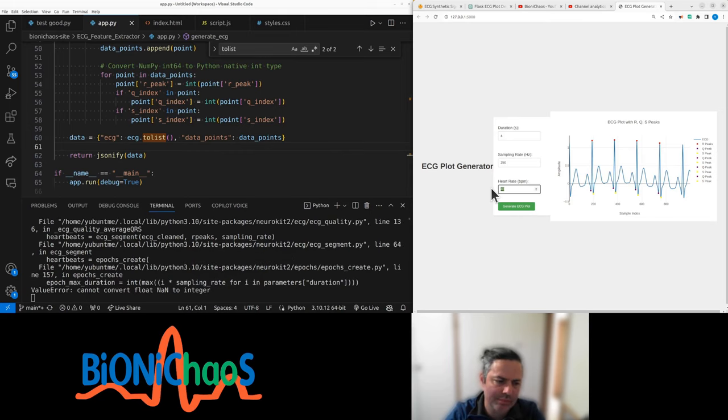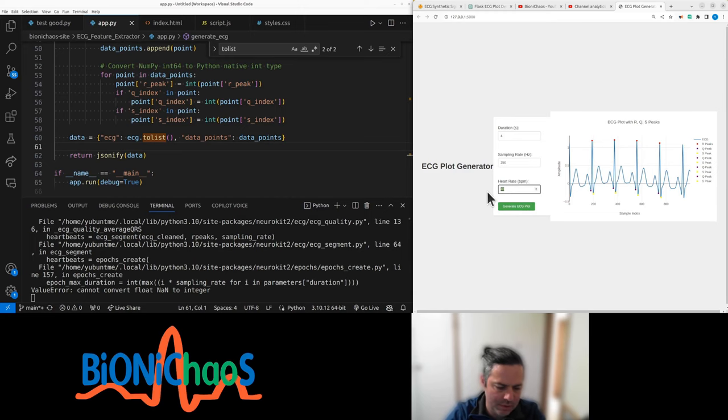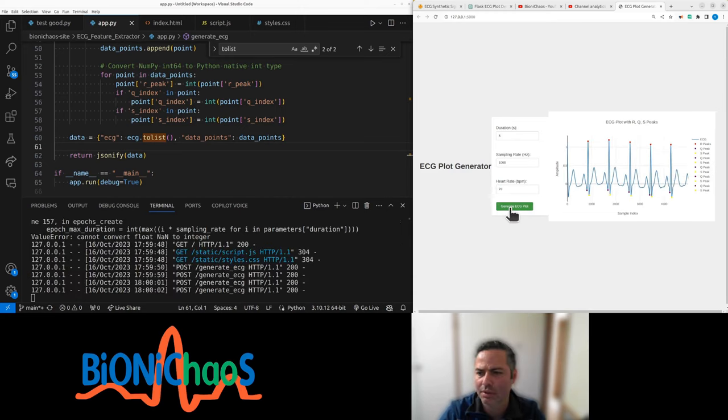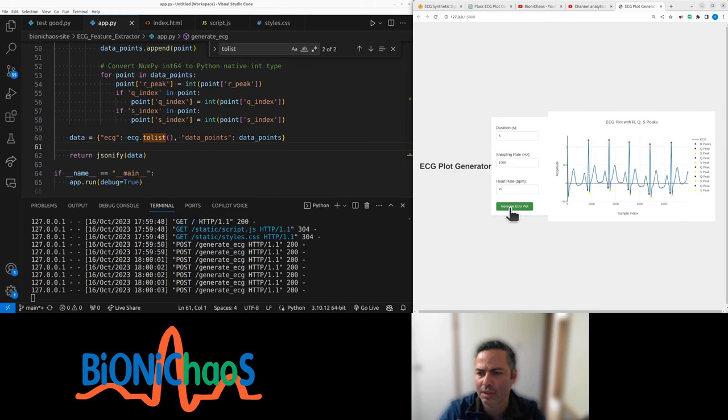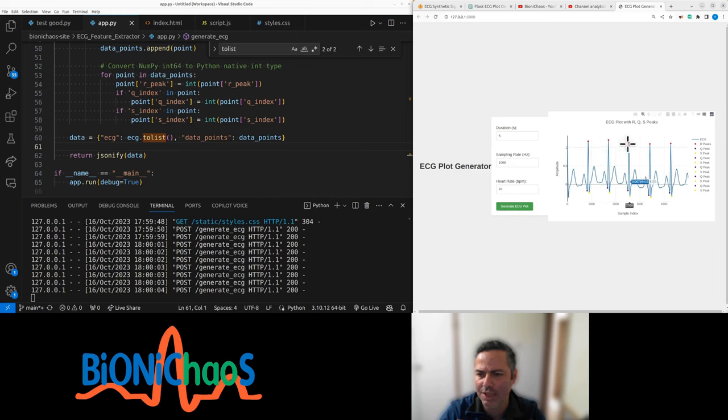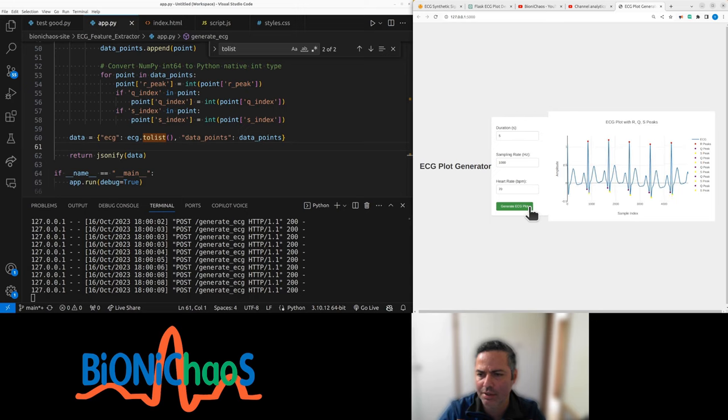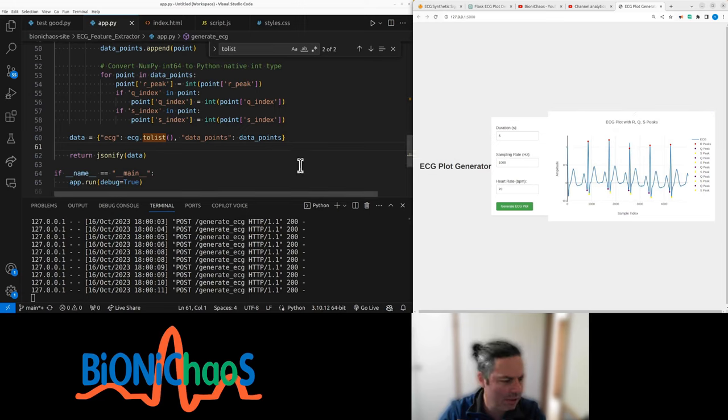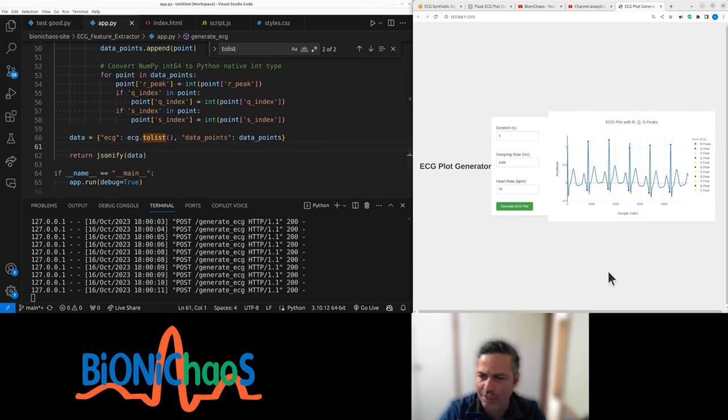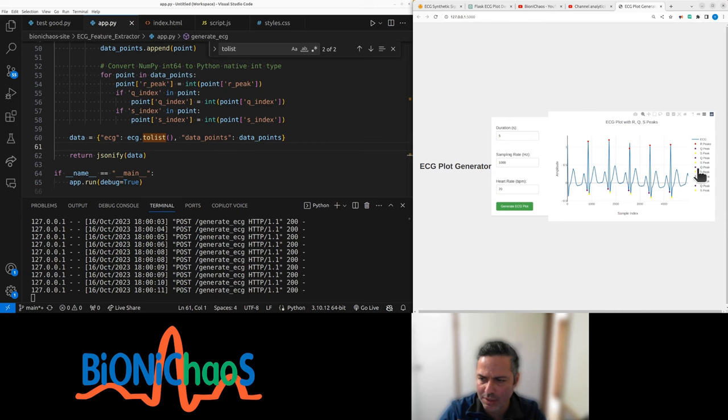Float to integer. There was a glitch there. Yeah, over there. What's up with that? That's not great. Why are there so many of these labels in the caption?